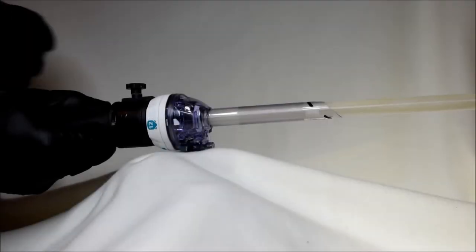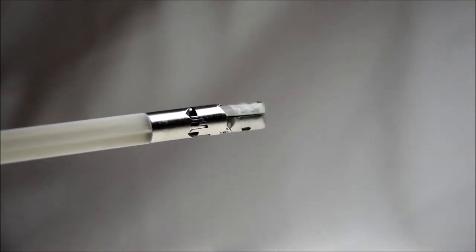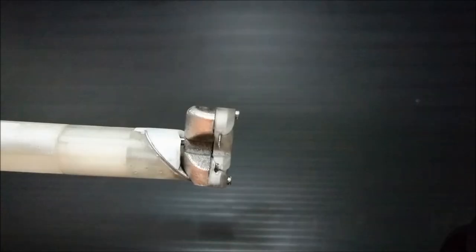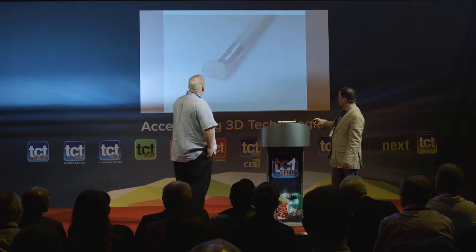So the whole idea would be instead of having to pass a needle, take the robotic instrument out to insert a needle, put the arm in, and then as you saw in the video stitch, the idea is that the needle is pre-loaded in this. This forms part of the robotic arm. And as you can see in the prototype, the needle will pass through nice and smoothly with a guide that allows the suture to follow behind. And it now works. It can now be done. It worked for the first time three days ago.